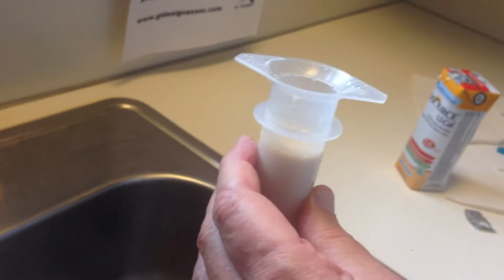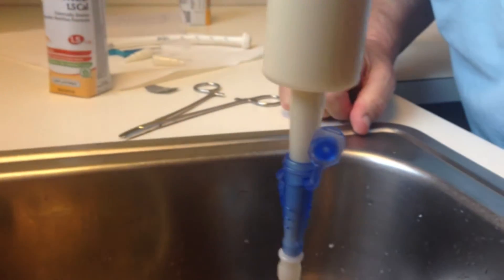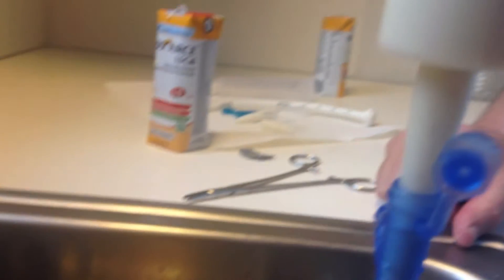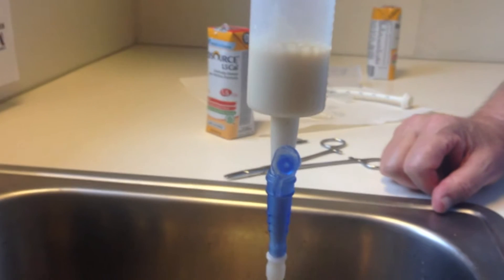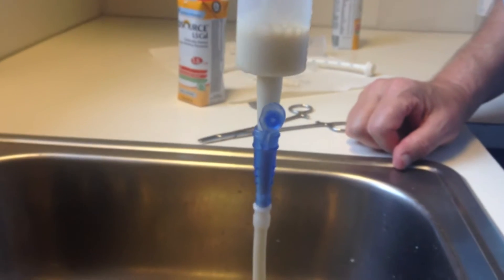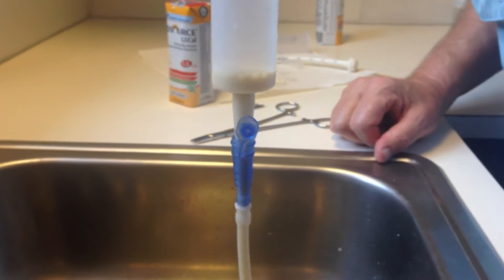To see how many seconds it takes to drain the full amount: 1, 2, 3, 4, 5, 6, 7, 8, 9, 10, 11, 12, 13, 14, 15, 16, 17, 18, 19, 20, 21, 22, 23, 24, 25, 26, 27.